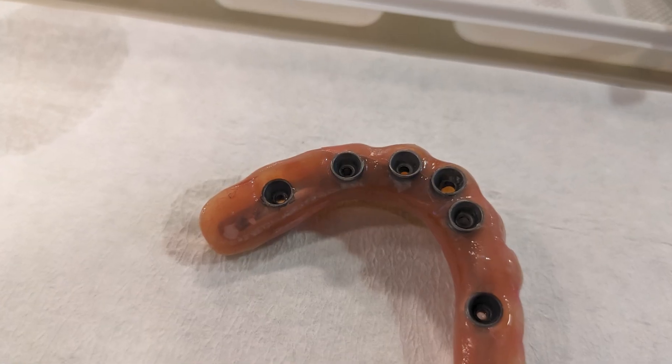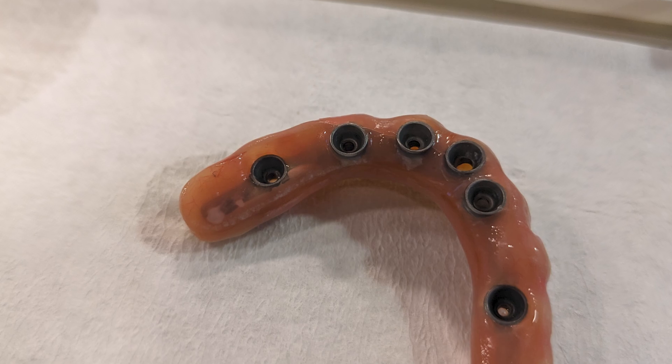There are some materials I've moved away from because of the issues related with those, and some which I absolutely love but can sometimes be outside the budget for some people. But there are some really cool happy medium solutions. Five years ago we used to make an acrylic wrap for the final set of teeth — you'd still have a titanium bar as a skeleton, but then you'd have acrylic, which is denture material, a hard plastic wrapped around this bar, and this works well in a lot of situations.